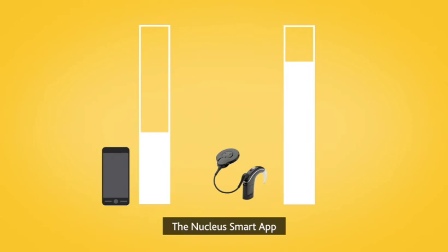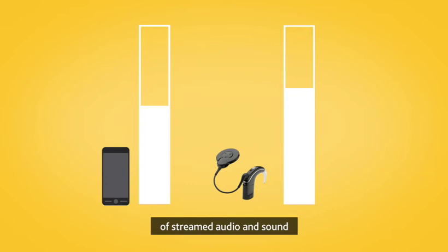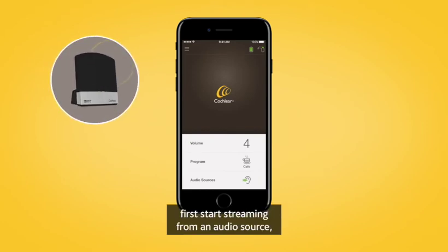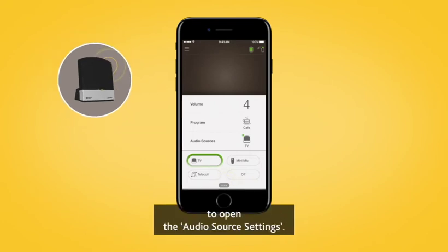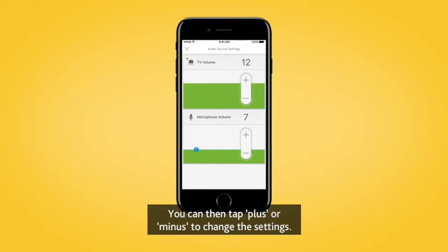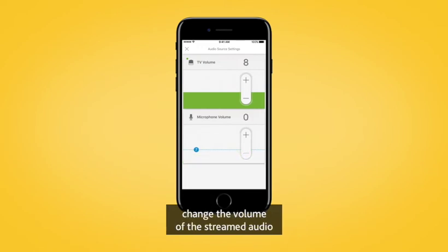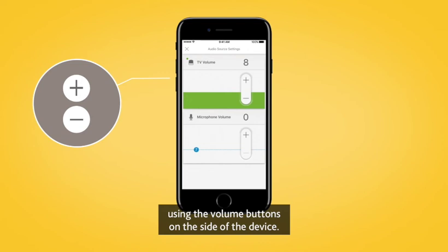The Nucleus Smart App also allows you to separately adjust the volume of streamed audio and sound from your sound processor microphones. To do this, first start streaming from an audio source, then tap More to open the audio source settings. You can then tap plus or minus to change the settings. If streaming audio from your Apple device, change the volume of the streamed audio using the volume buttons on the side of the device.